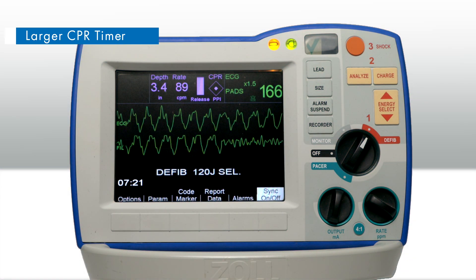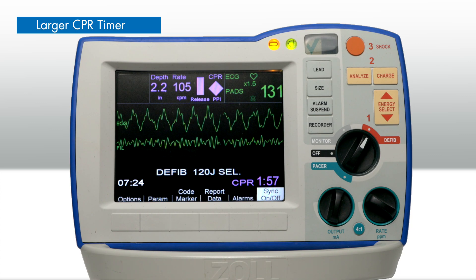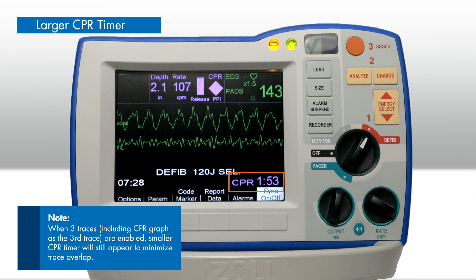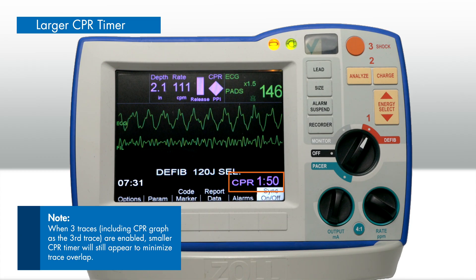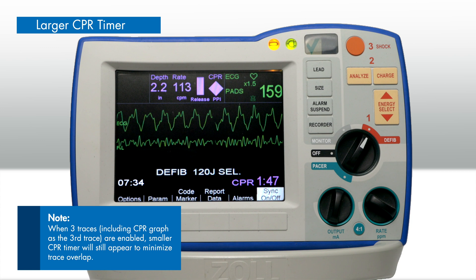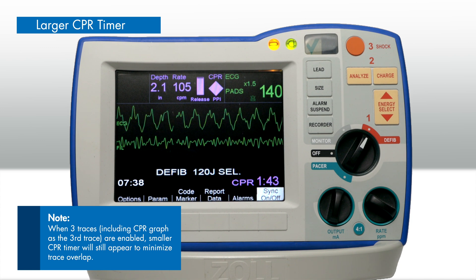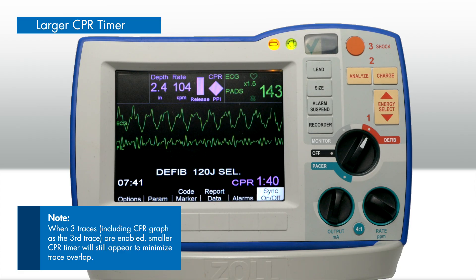To enhance the user experience, the R-Series will display a larger CPR timer on the user interface. Configurable settings were added to facilitate improved visual and audible feedback, prompting completion of compressions at the end of a CPR period in both AED and manual modes.